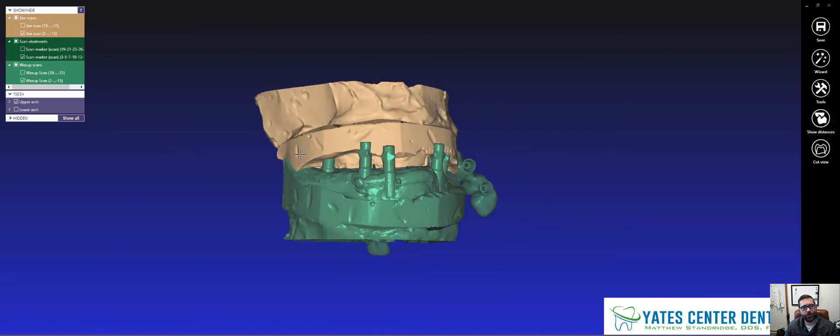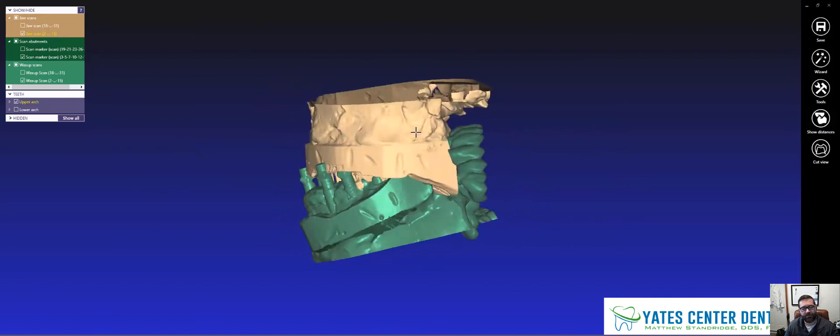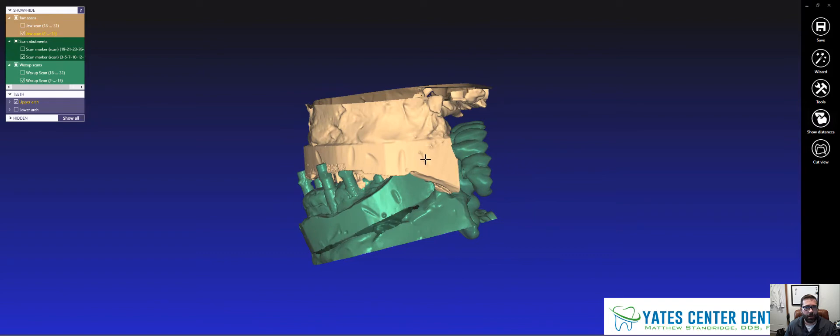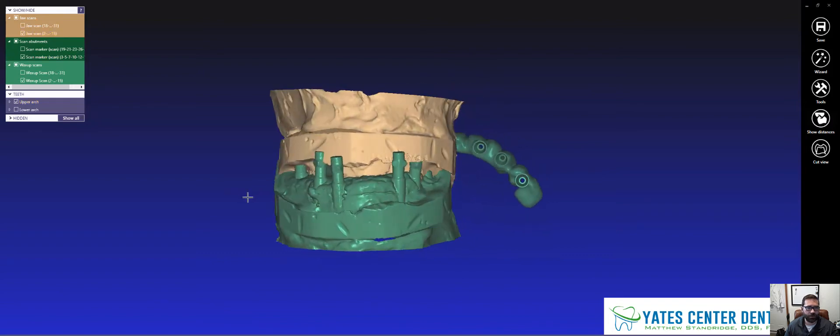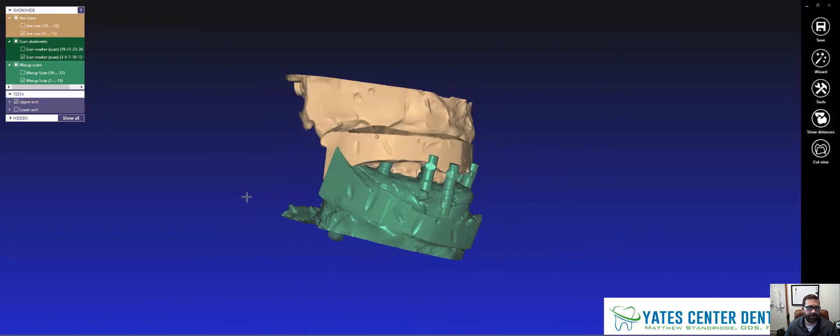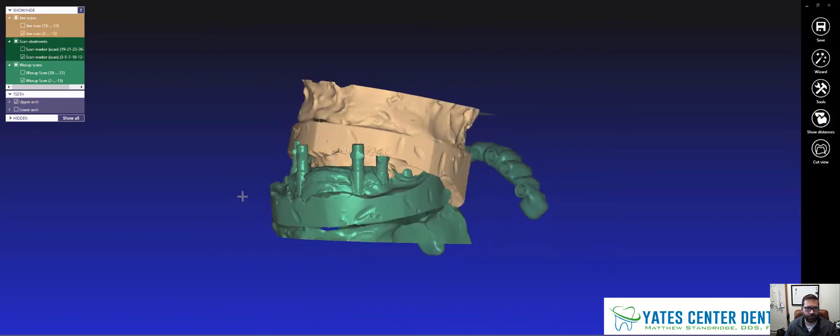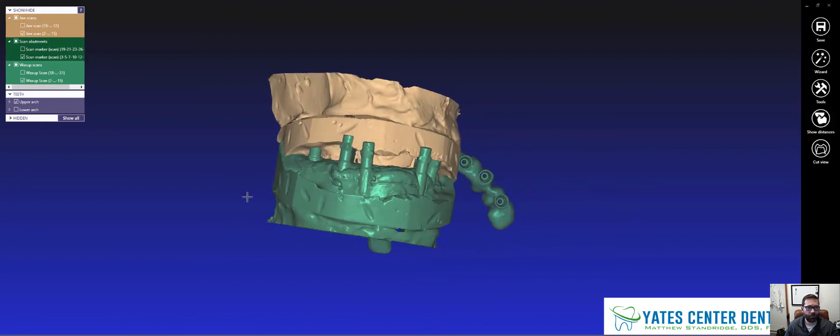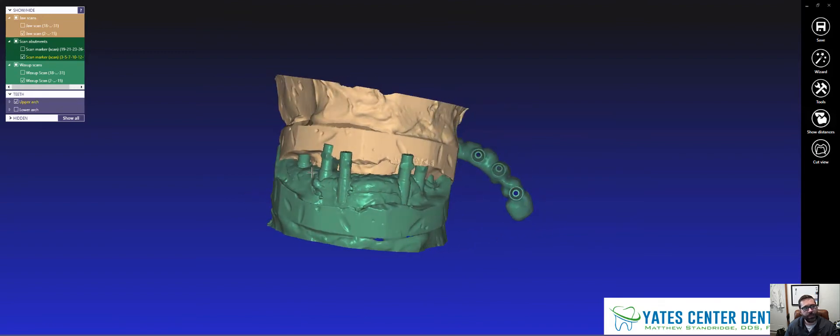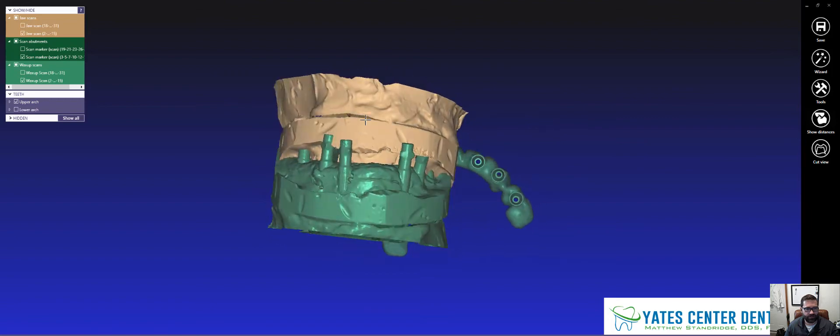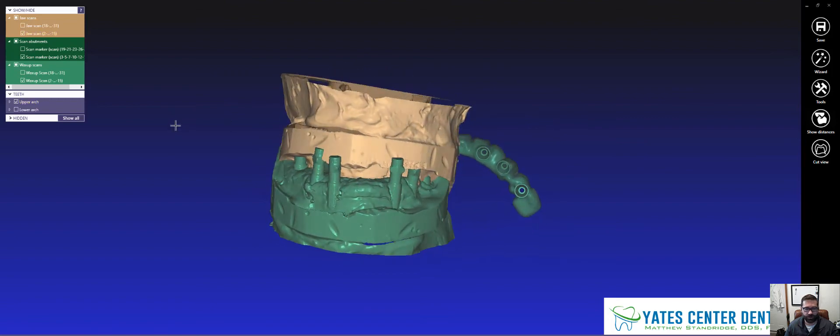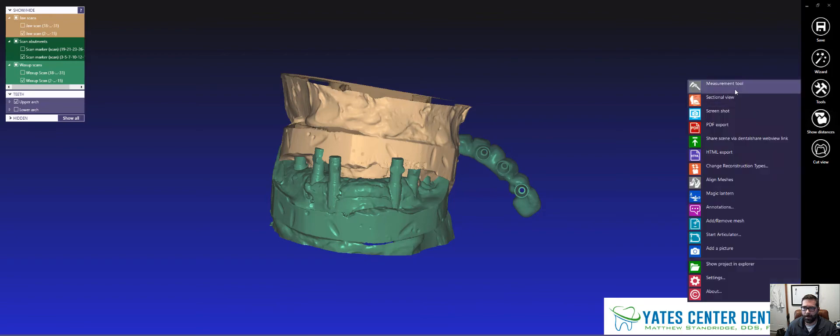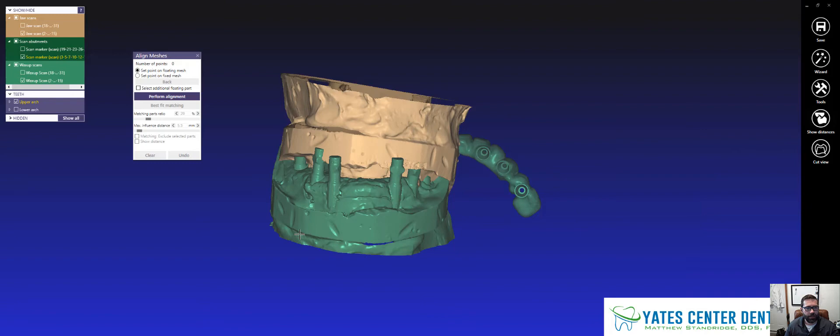So if you notice here, I put these little marks. If I'm using my desktop scanner, I put these little marks here so that way I can keep relation with each other. So what we're going to do is, while in expert mode, I turn off all the scans that I don't want. So I just start one at a time. And I'm going to go to Tools, then right here, Align Meshes.